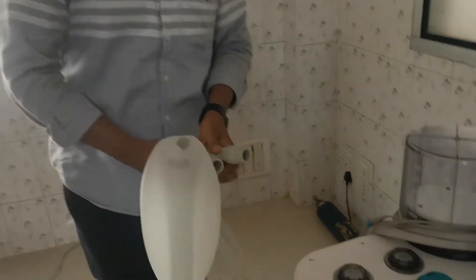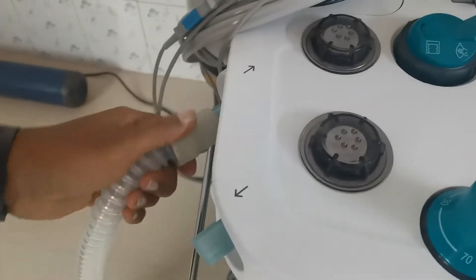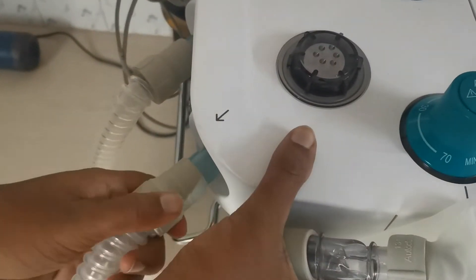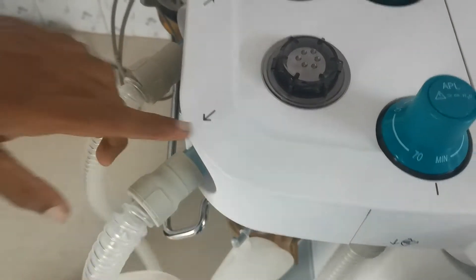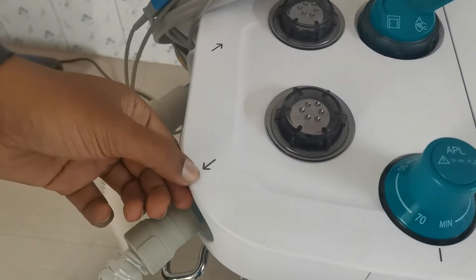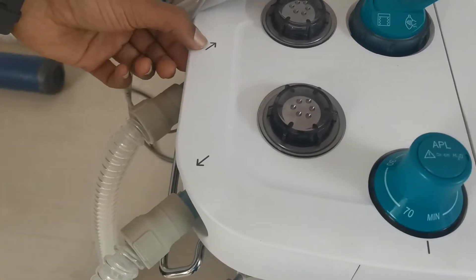We can connect the tubing here. You can see the arrow — this is inspiratory. And you can see the arrow — this is expiratory.